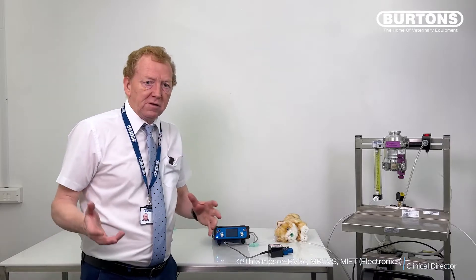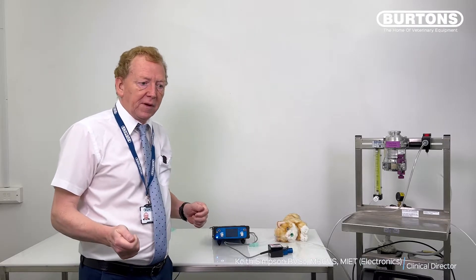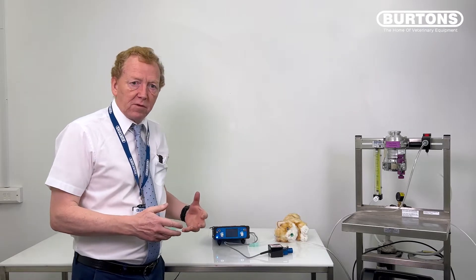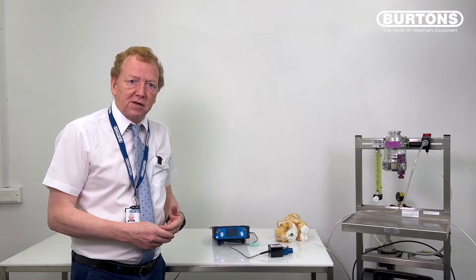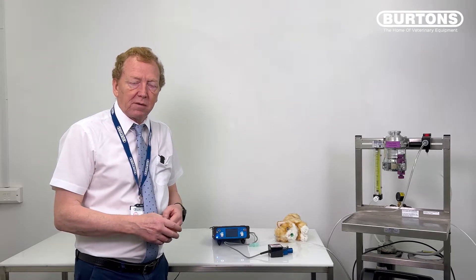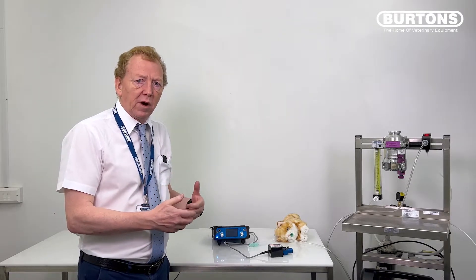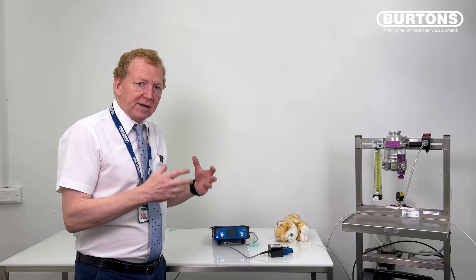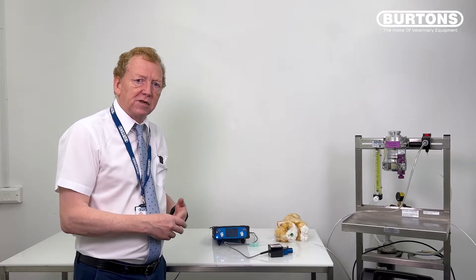Hello and welcome to this short video on the use, setup, and checking of the SAVO4. This quick video shows people how to come in on a daily basis, check their machine, set it up for correct use, and then initially how to start using it. There are more extensive videos on how the machine works and the complications surrounding those setups — this is really just your daily checks.